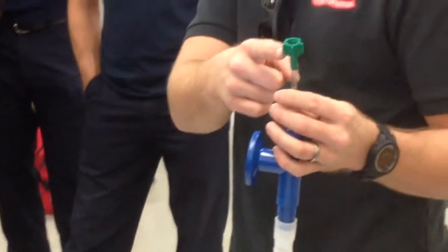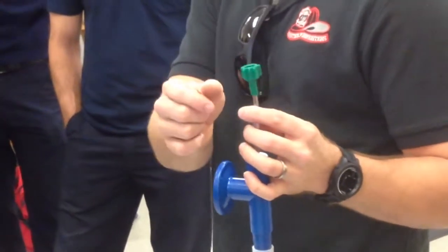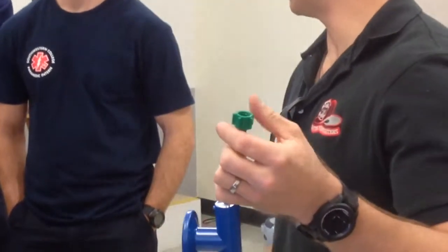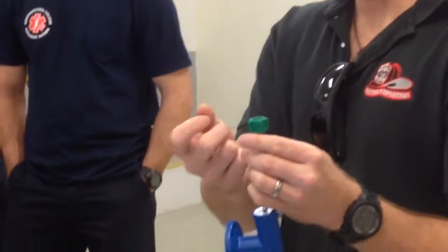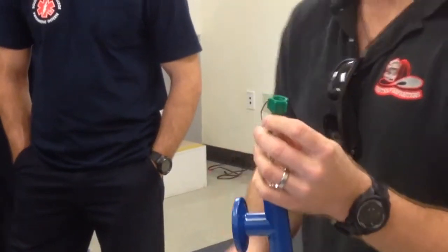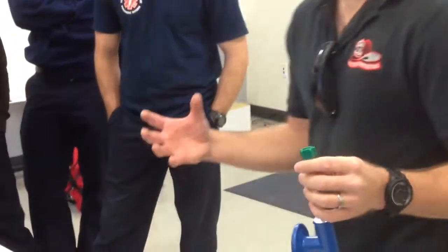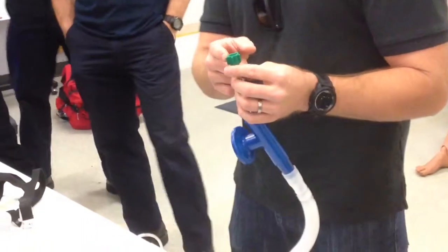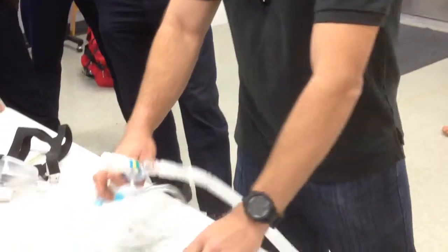Do you guys know the liters per minute of O2 going here? It'll be open, right? So it's kind of just open, right? If you're on your Christmas tree, where the Christmas tree is on your wall mount, you're going to pull the Christmas tree off and screw this in. Okay? On a lot of the portable oxygen cylinders, there's another port that you can just screw this in, and it's just on or off. You can't dial up the flow like if you plug in a cannula or oxygen tubing to it. So it's pretty much on or off.